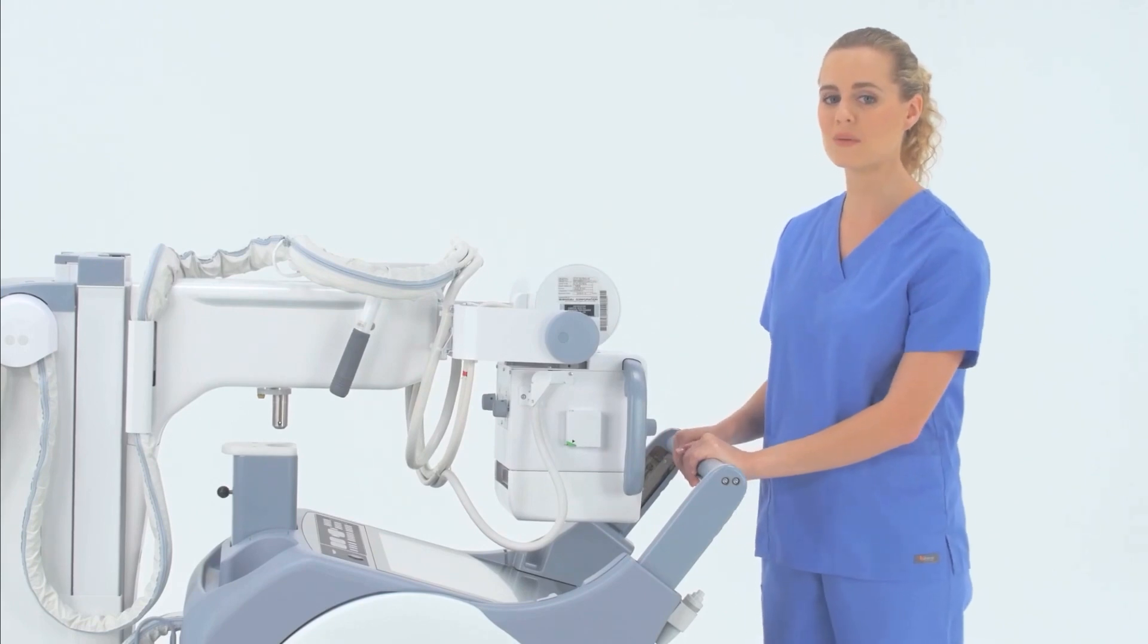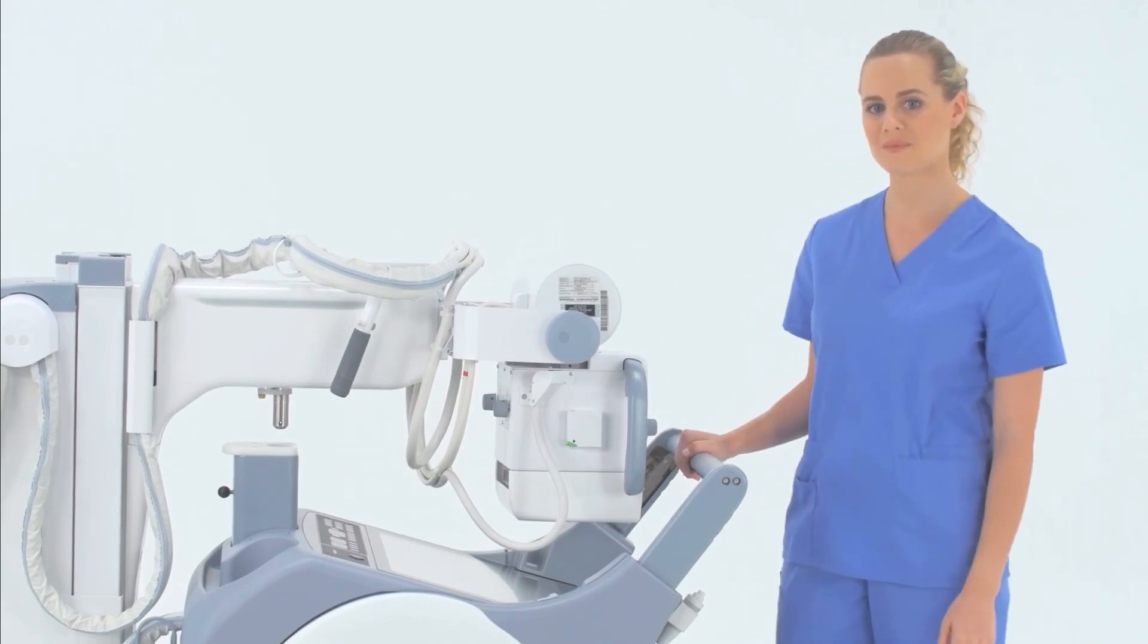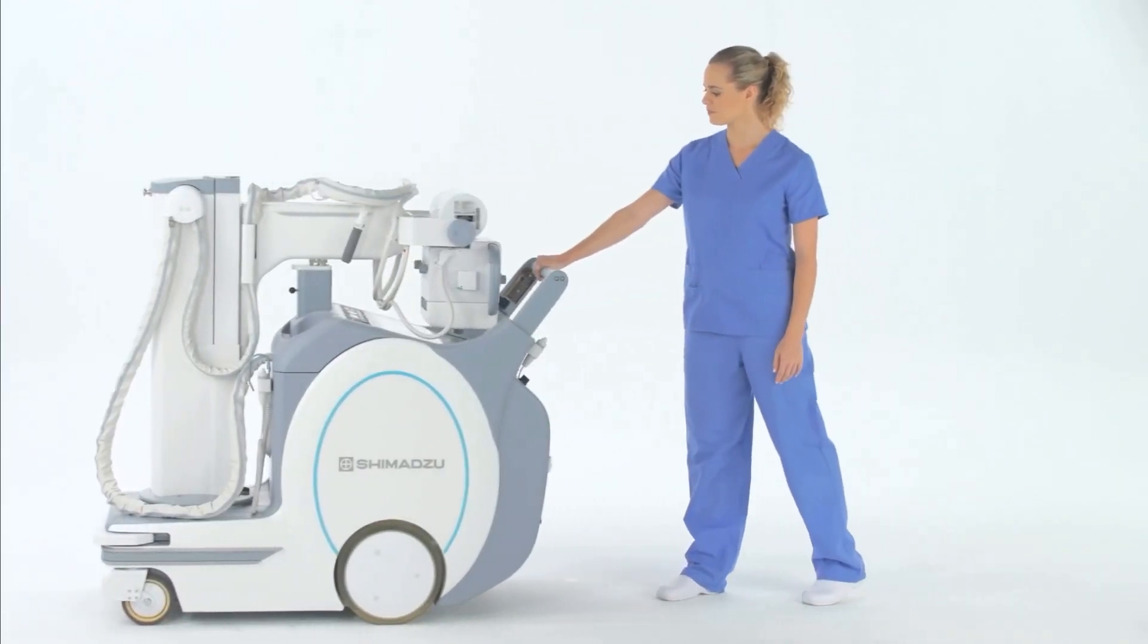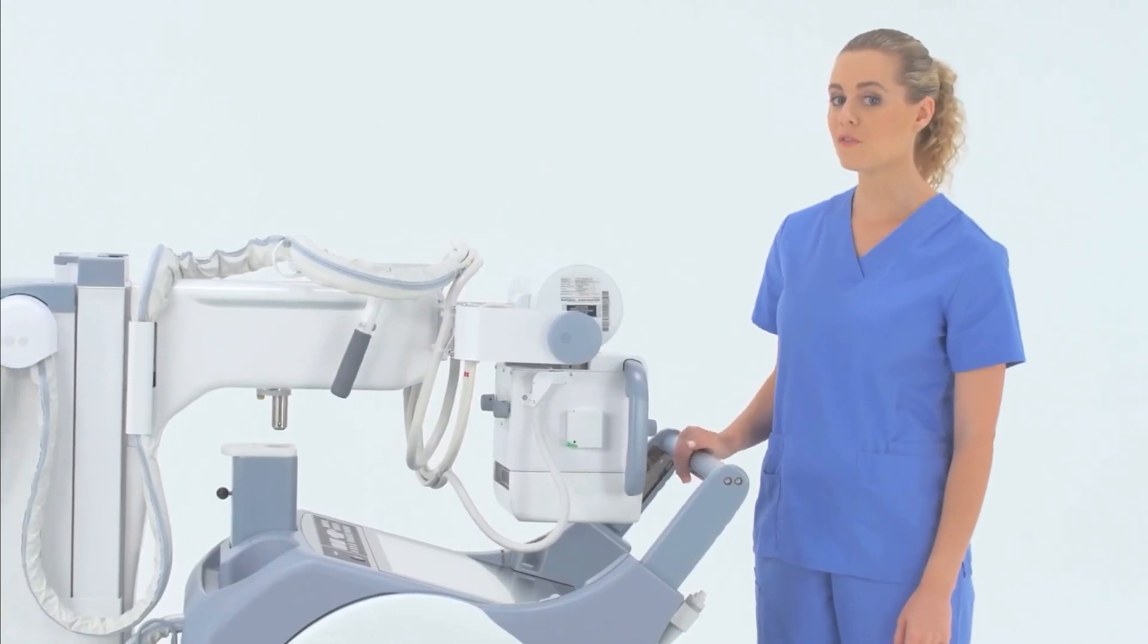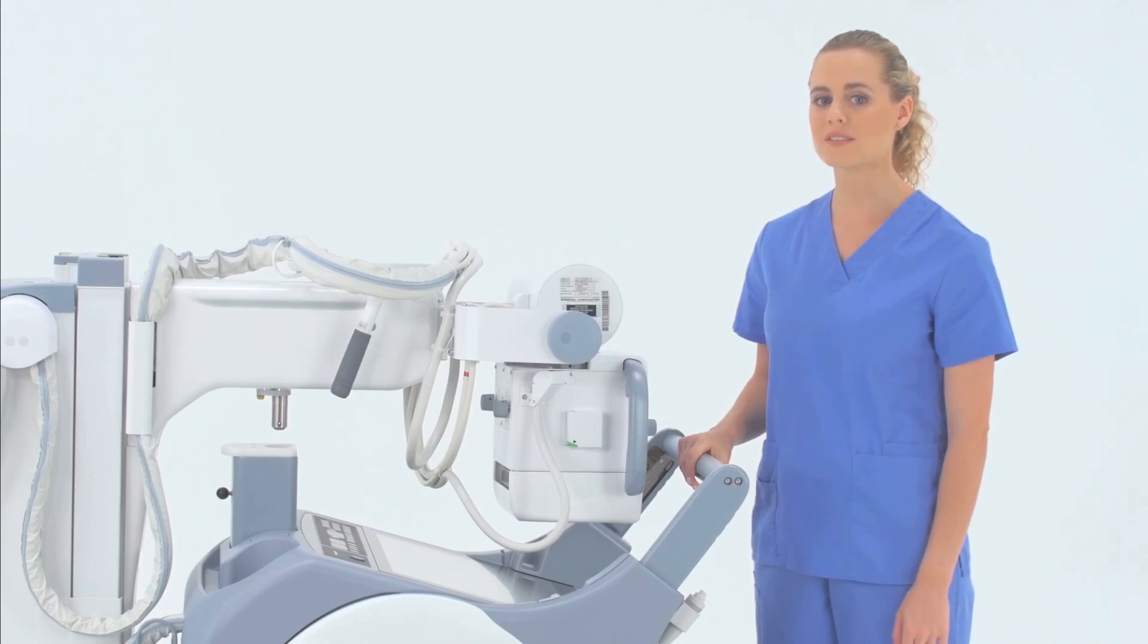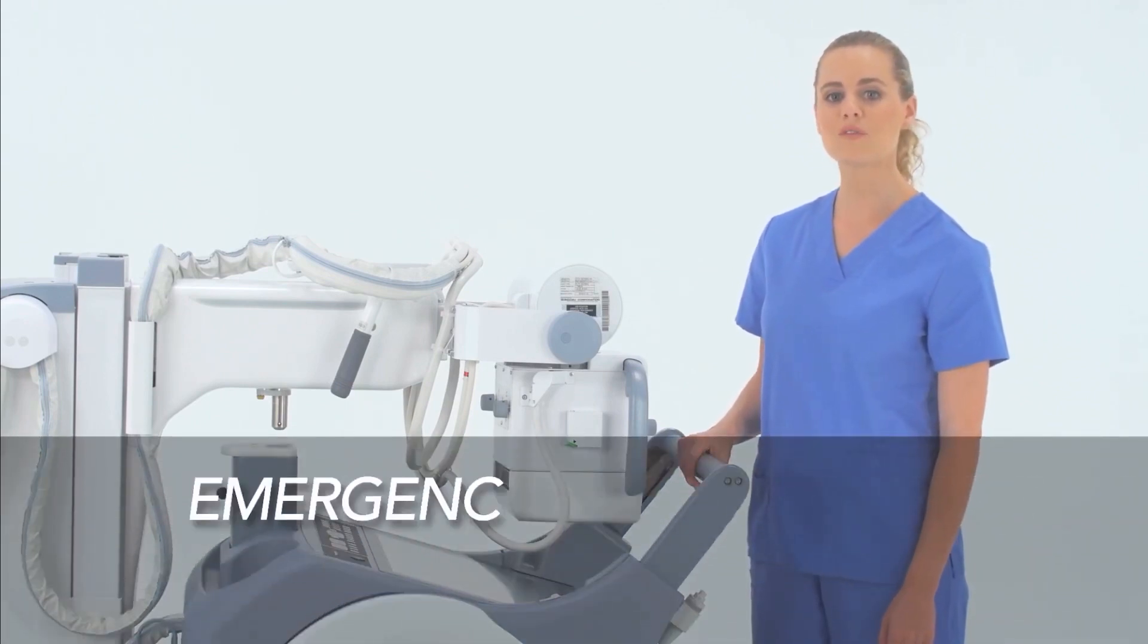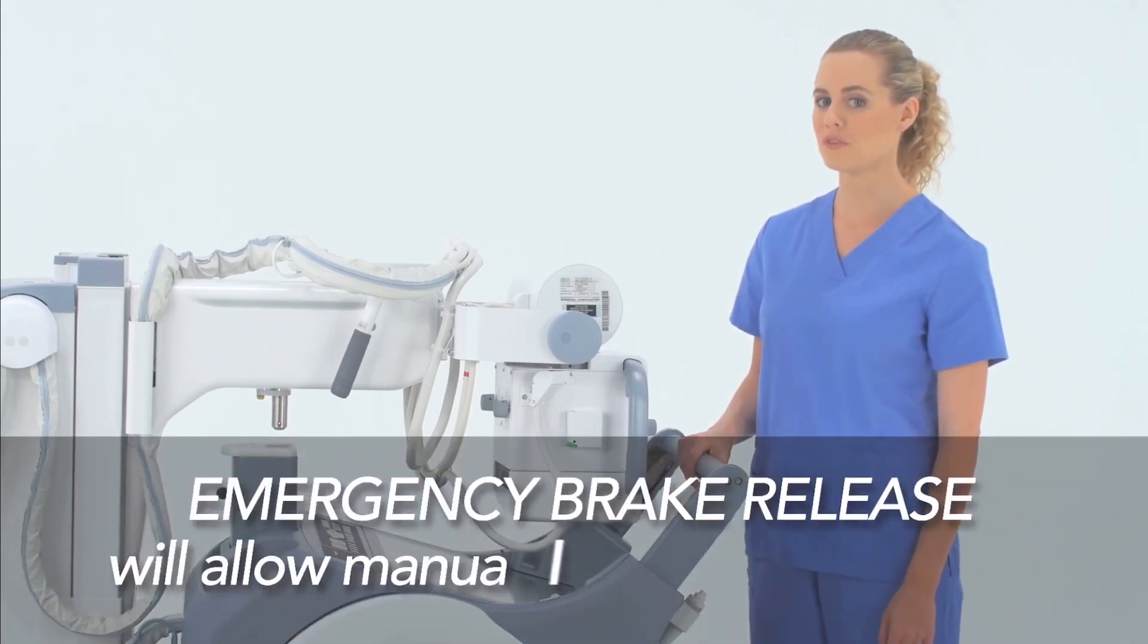The system is so responsive that it can be easily controlled using one hand. If you find yourself in a situation where power assist is not functioning, the emergency brake release button will allow you to manually move the unit.